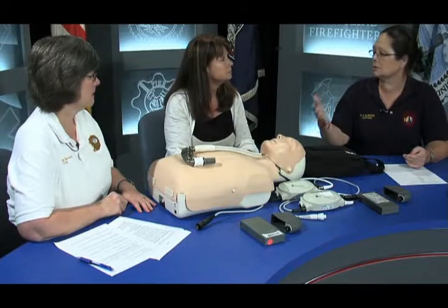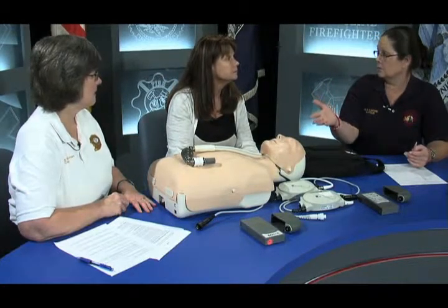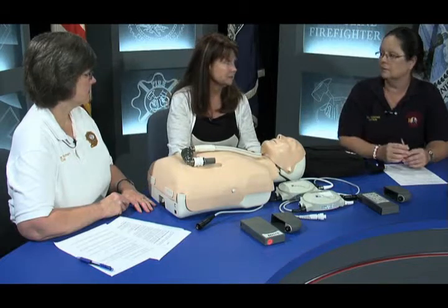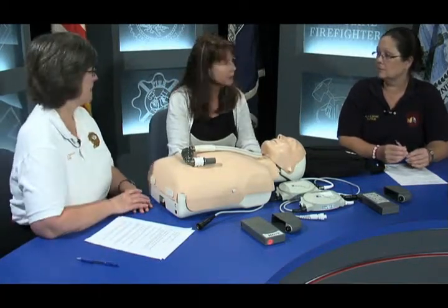Just to reiterate: I should not be starting CPR on a VAD patient before contacting you to help troubleshoot all the connectors, controllers, and batteries — everything that could possibly be fixed. CPR is a last-ditch effort because the pump is just not working. And to reiterate how important that is: if you do CPR on an LVAD patient, we certainly want you to give every opportunity to survive, but there are complications. CPR can dislodge the pump — which is a direct line — so now you have a patient who's bleeding out.